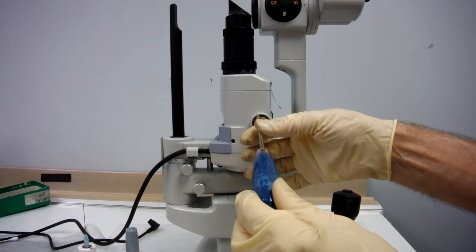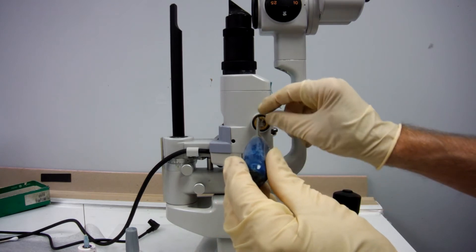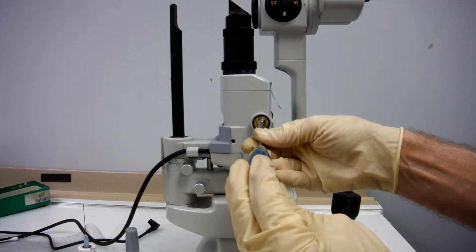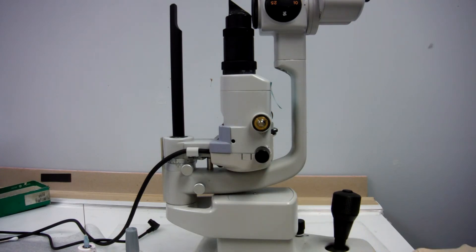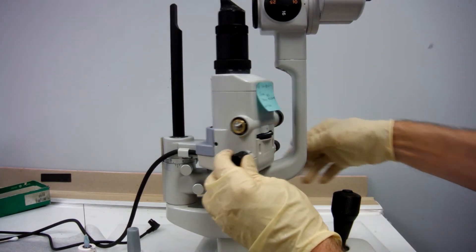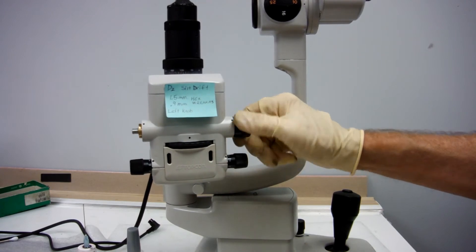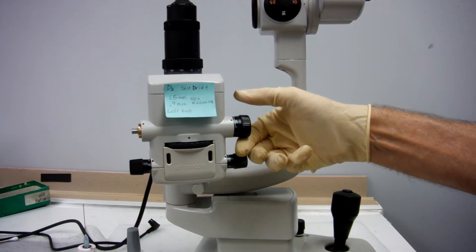Once you loosen it, you can turn it. I'd say turn it a quarter to a half, and then check your drift, see if it's moving.